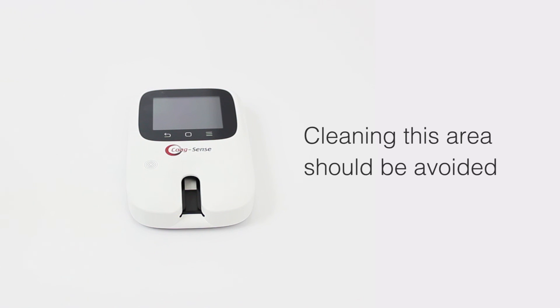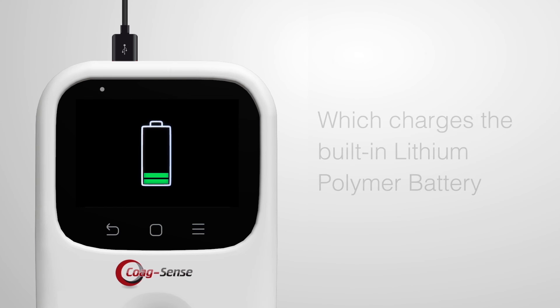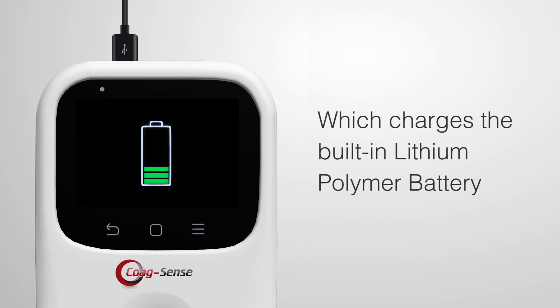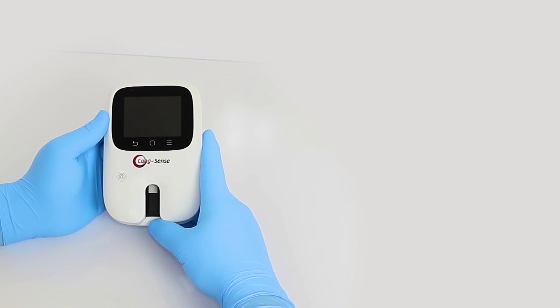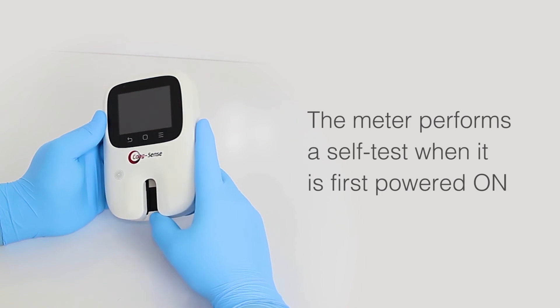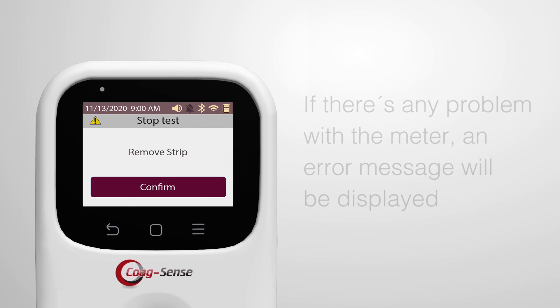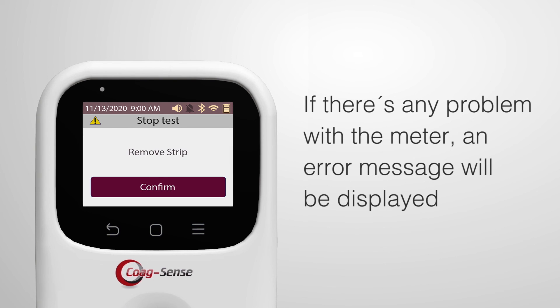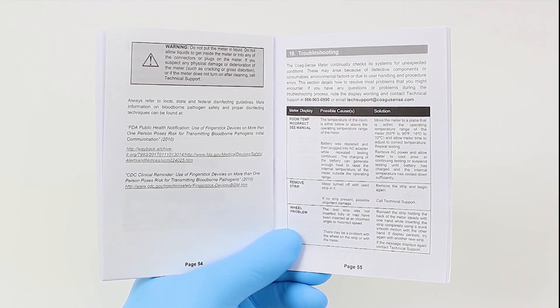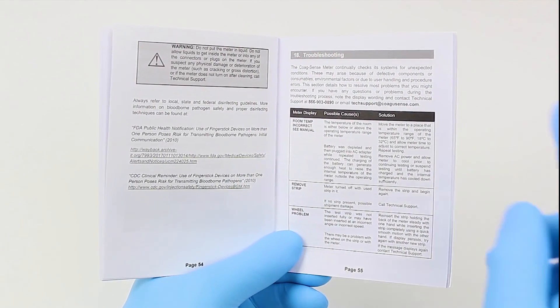The meter can be operated with a power adapter provided in the kit, which charges the built-in rechargeable lithium polymer battery. The meter performs a self-test when it is first powered on. If there is any problem with the meter, an error message will be displayed. For a complete list of error messages and their troubleshooting, please refer to the troubleshooting section in the user's manual or contact technical support.